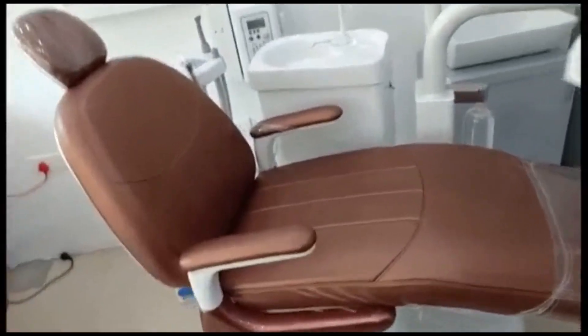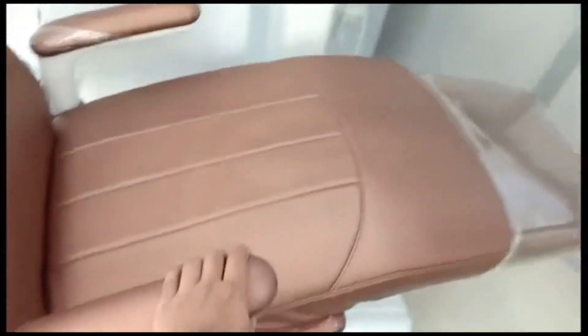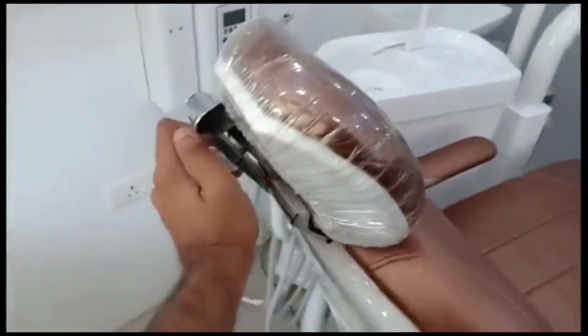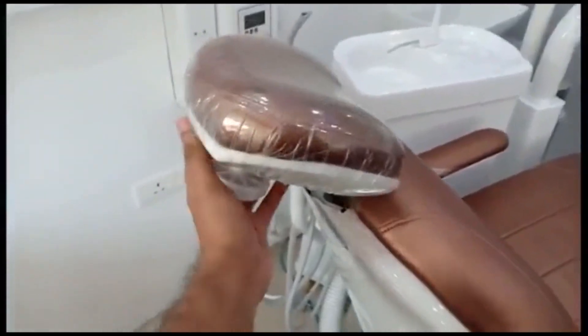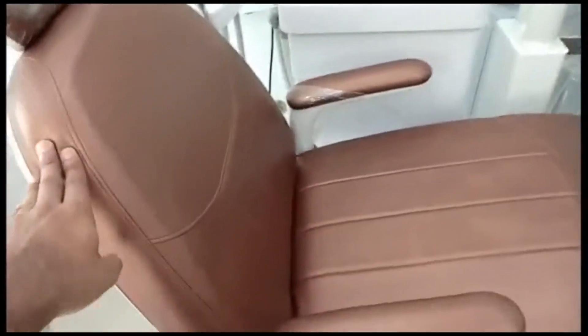This is where the patient is seated — this is the patient's seat, and this is the patient's backrest. This is the headrest. These are the handles. The headrest can be changed in position according to the dentist's convenience — you can rotate it like this. So this is the headrest, backrest, and seat.